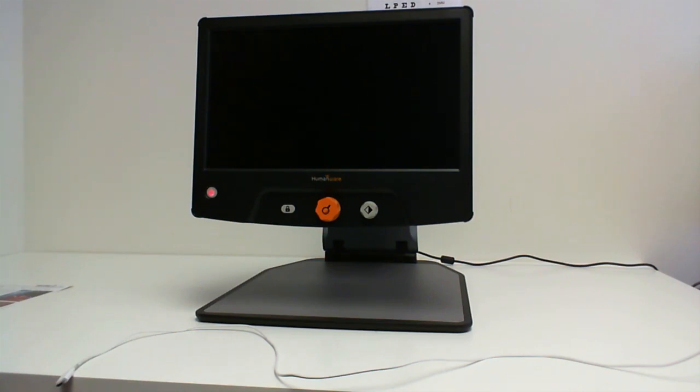My name is Eric Bosha. I am the product manager for low vision devices at HumanWare. In today's little tutorial, we will demonstrate how to update the software on your Reveal16.